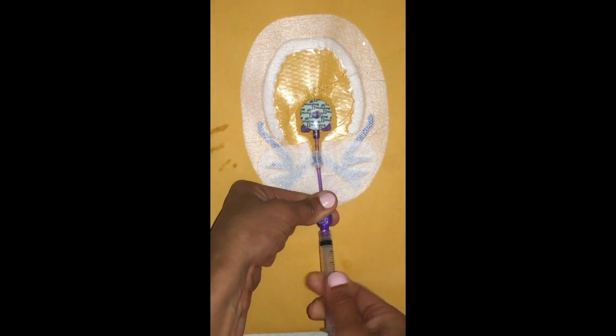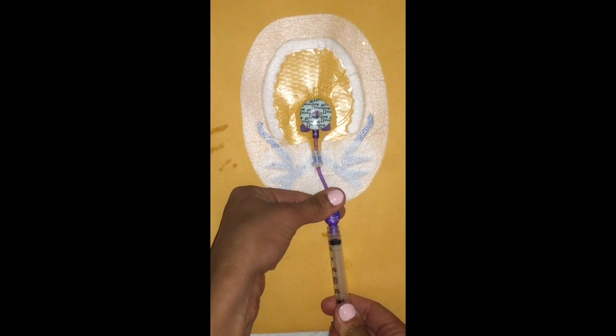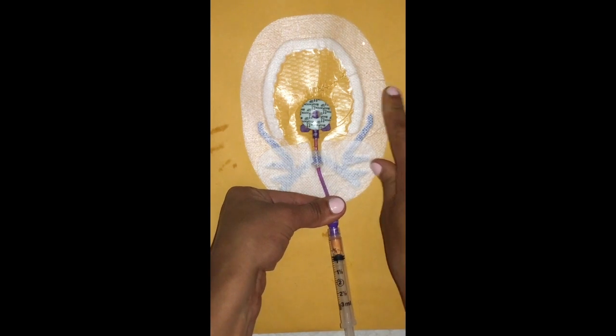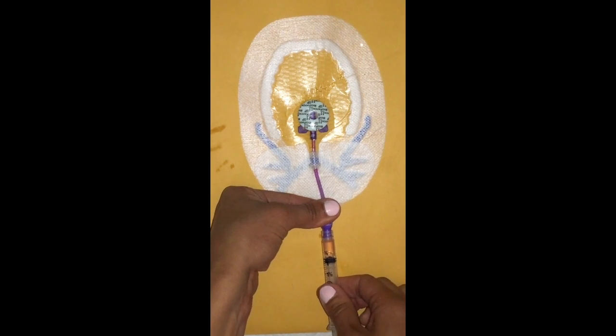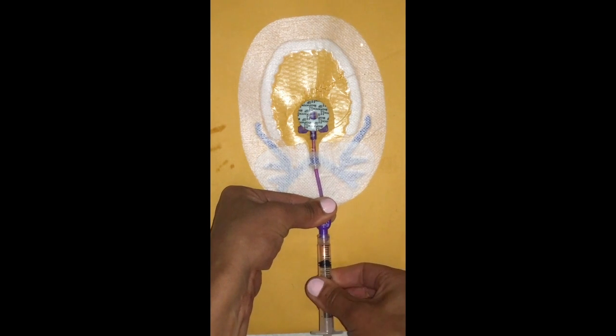Attach your 3 ml syringe, and then you're going to start to slowly draw back on the line until just a flash of blood is seen at the top. So nice and slow, you're going to pull back till a flash of blood is seen. Looks like probably there for me. Although this is not a real patient, as you may or may not be able to tell, so it's a little difficult. So flash of blood is seen, so that is your dwell volume.